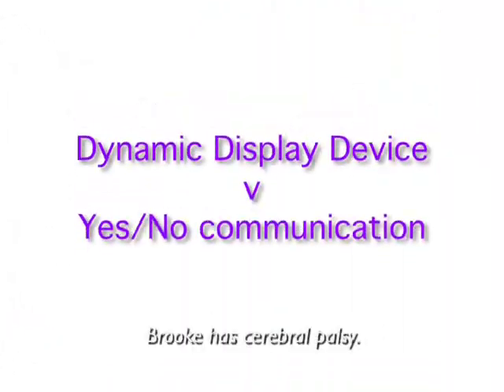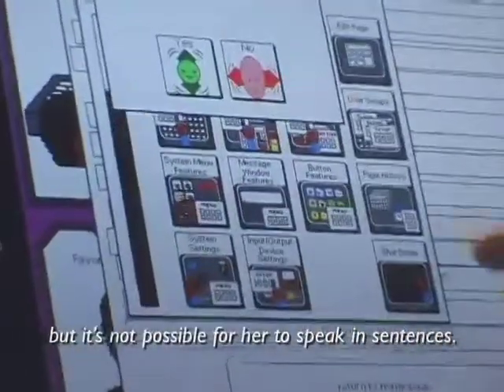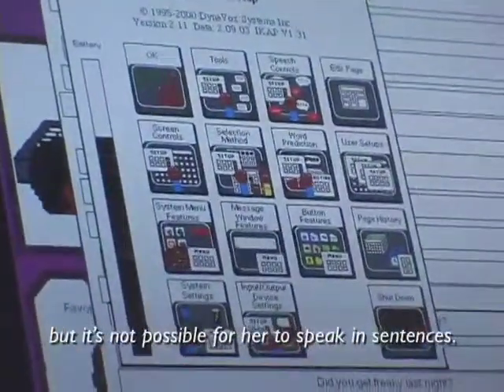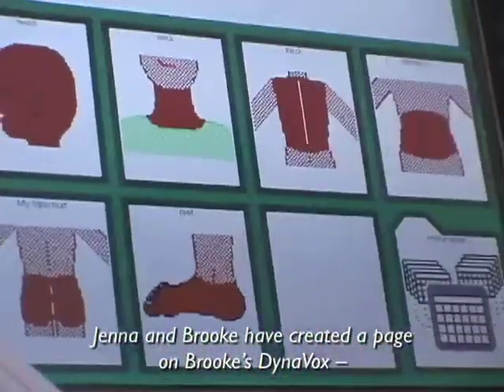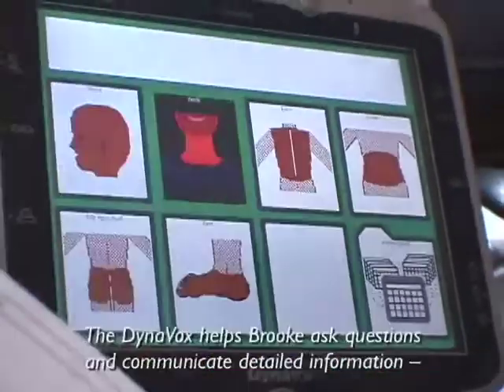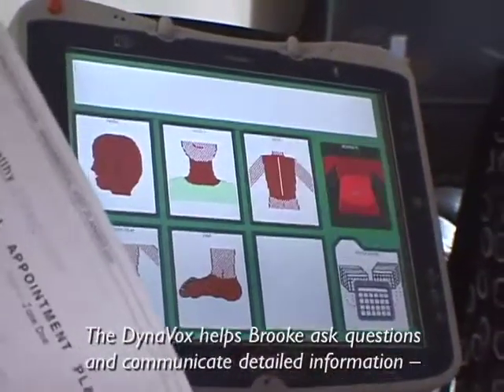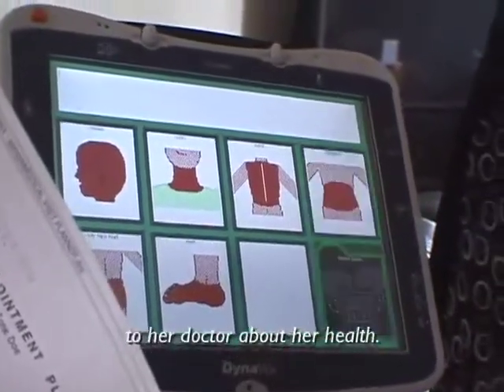Brooke has cerebral palsy. This means it's difficult for her to speak. She can communicate yes and no answers, but it's not possible for her to speak in sentences. Jenna and Brooke have created a page on Brooke's Dynavox that Brooke can use at doctor visits. The Dynavox helps Brooke ask questions and communicate detailed information to her doctor about her health.